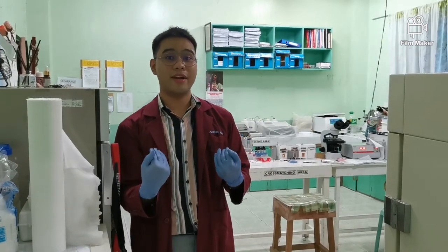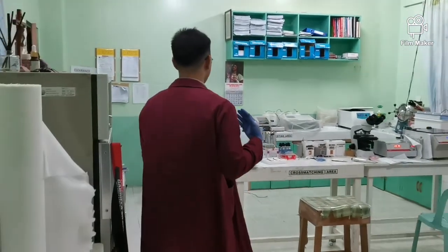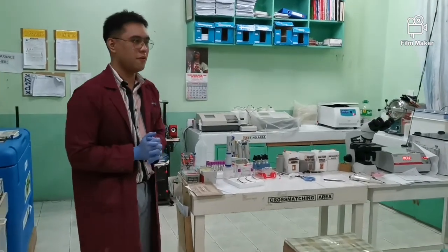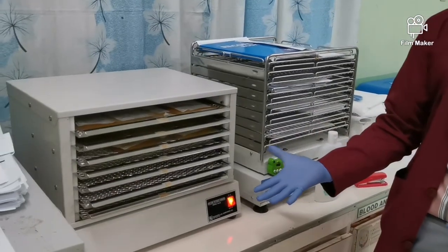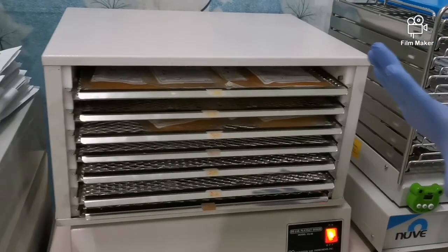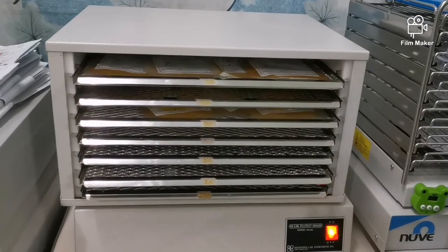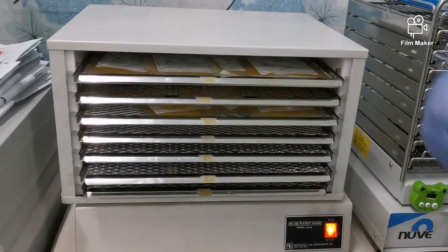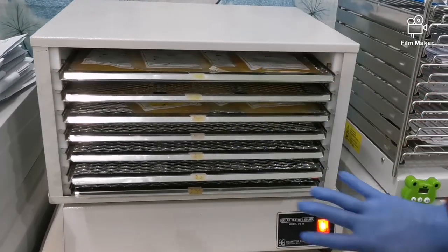So after the bleeding area, papasok naman tayo ngayon dito sa testing area, okay? Dito na mangyayari yung mga sinasabi kong testing ng infectious diseases, mga cross-matching. So yun, tignan natin yung mga nandito. Dito, meron tayong platelet agitator, okay? Yung mga platelet concentrates natin kailangan constantly agitated para hindi sila mag-clumping, okay? Kasi kapag nag-clumping na yan, wala na, hindi na siya pwedeng isaksak sa ating mga pasyente.